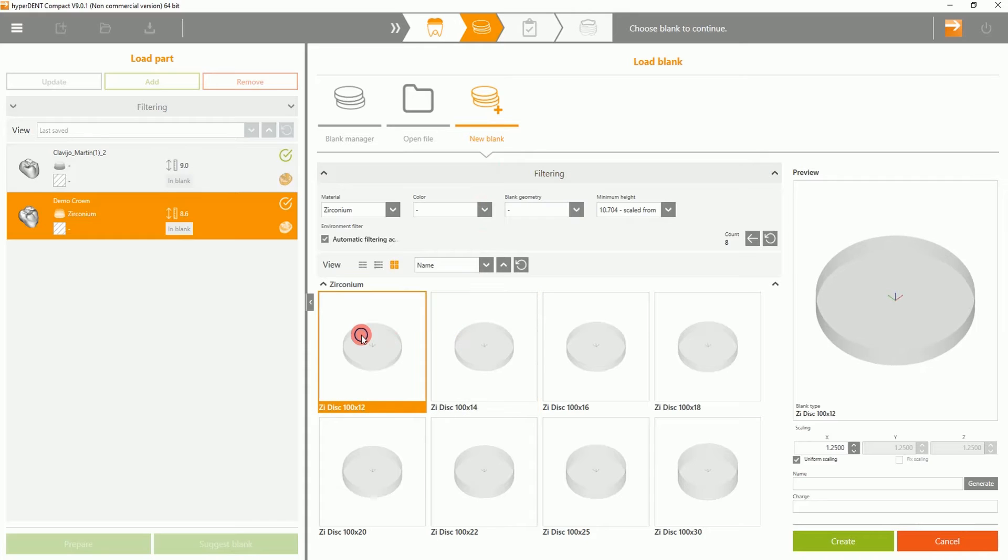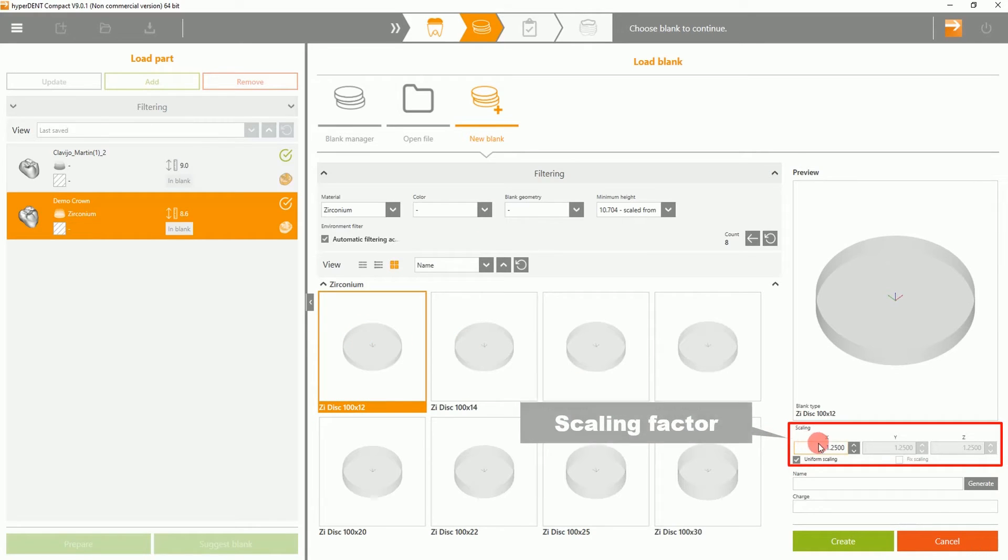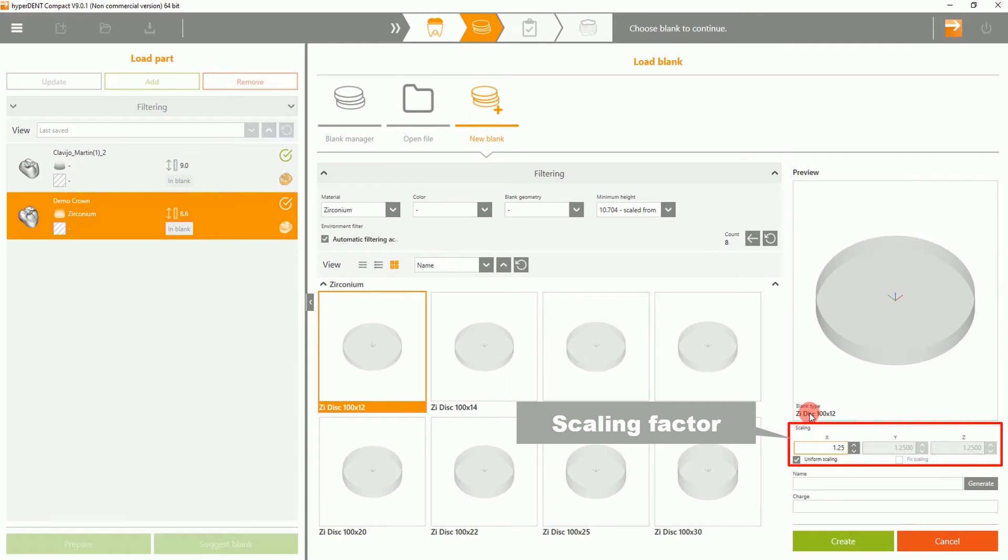Underneath, you can choose not only the type of disk, but the sizing. If you do not like the preset sizes on the right side, you can see the scaling factor, where you can customize and change the size.